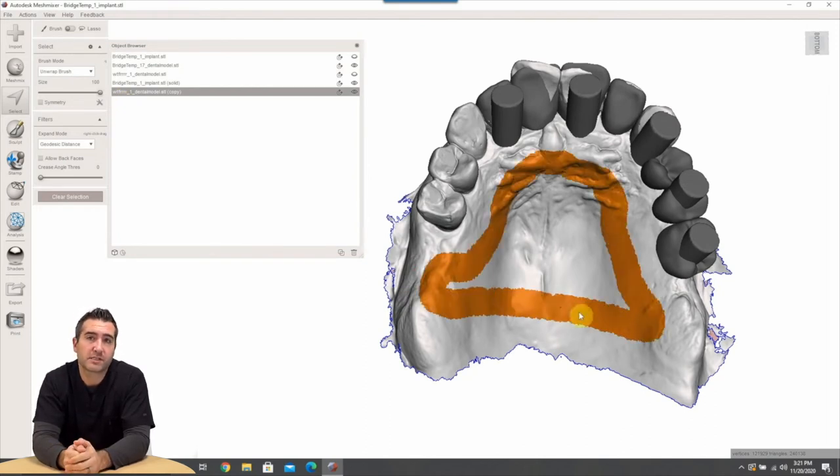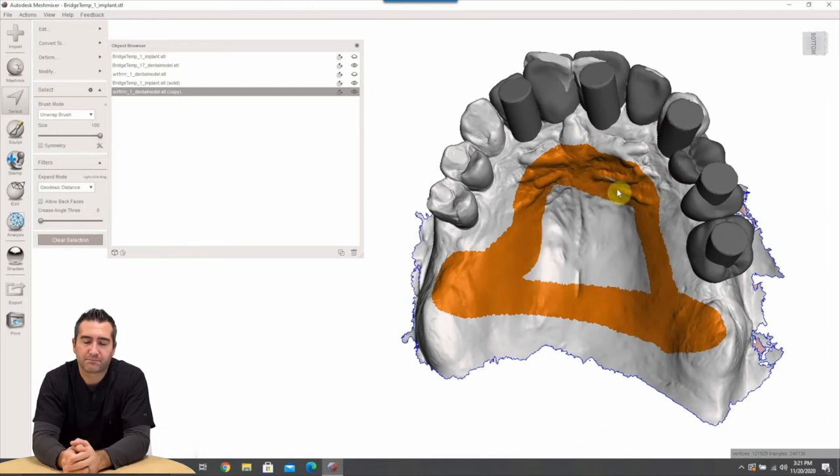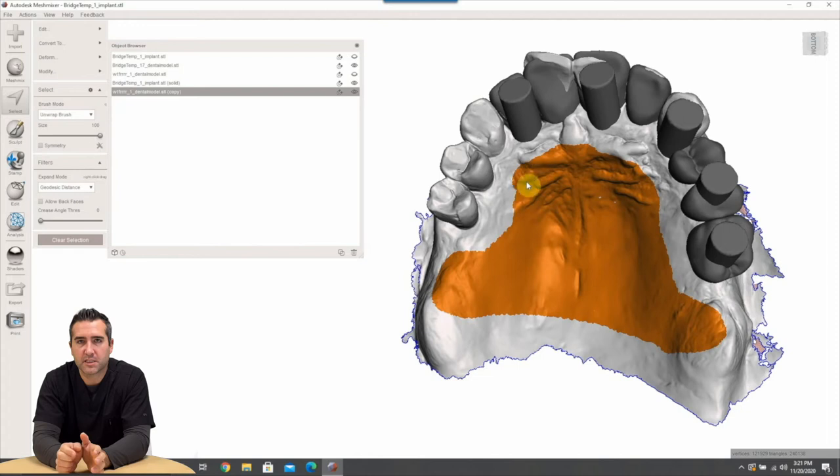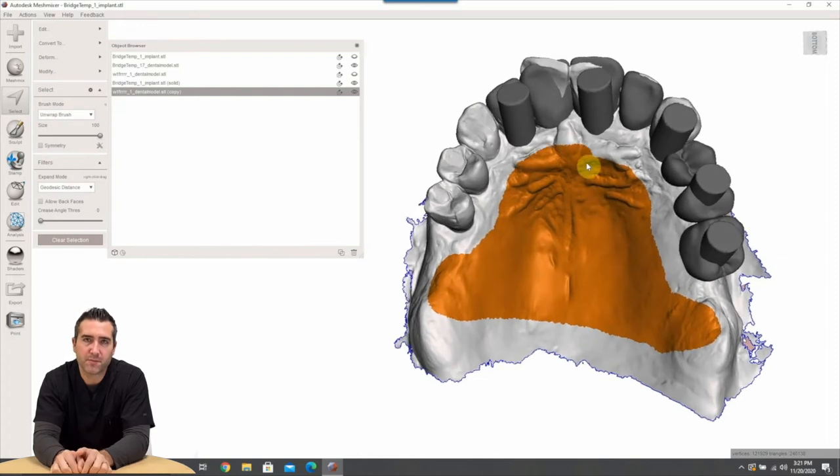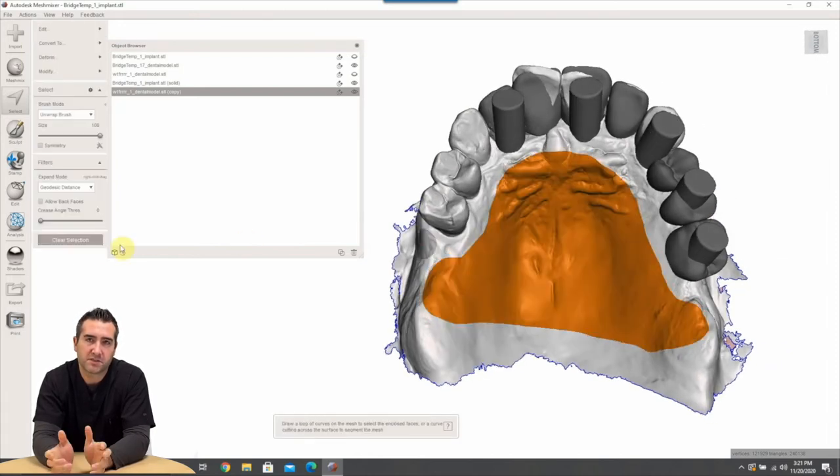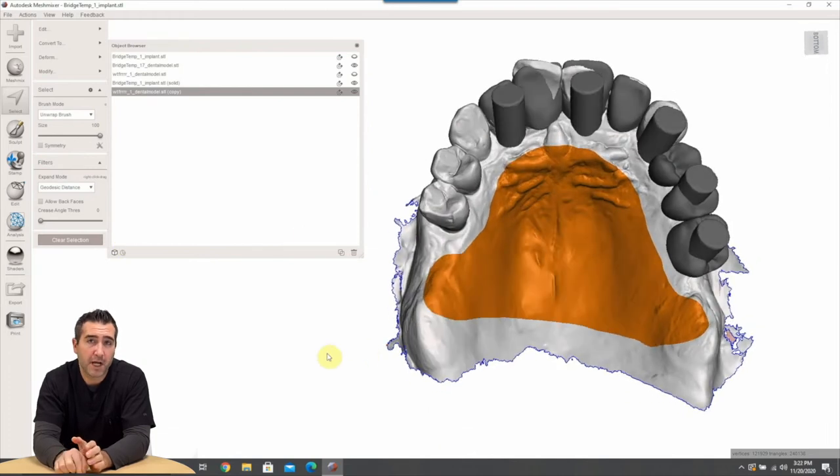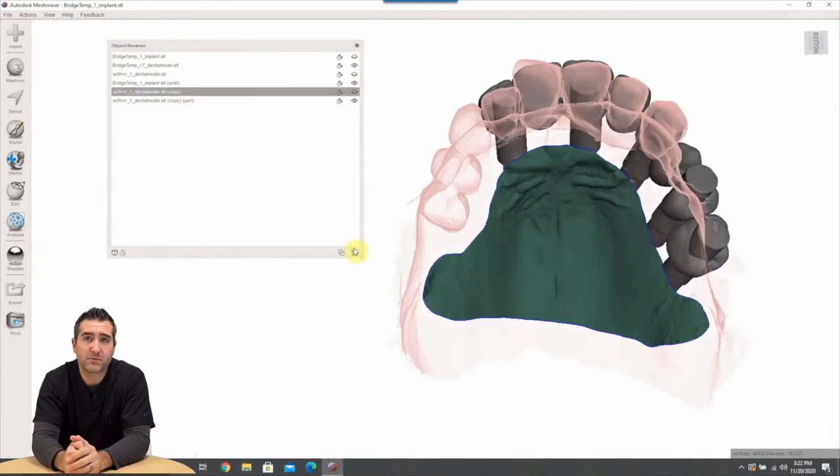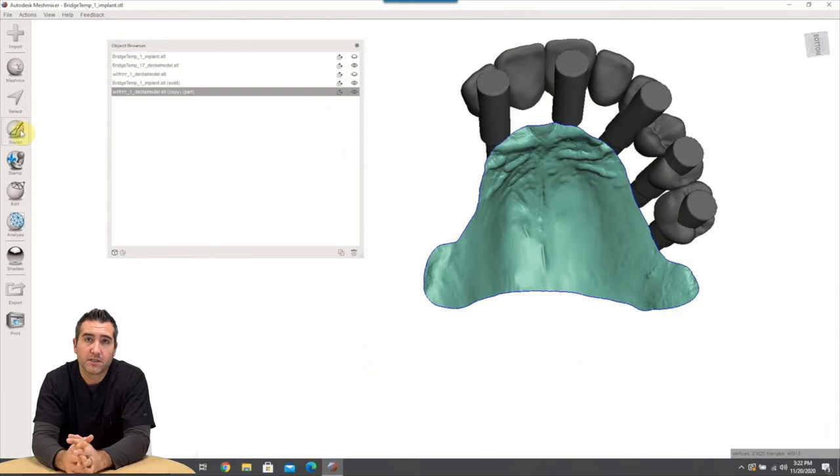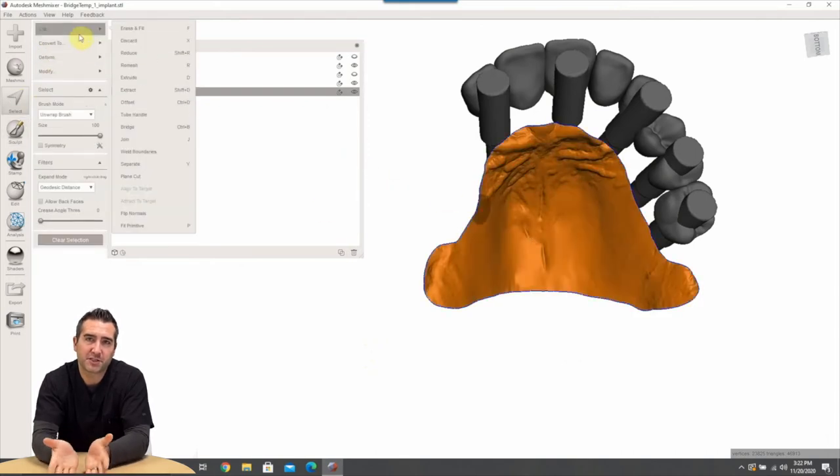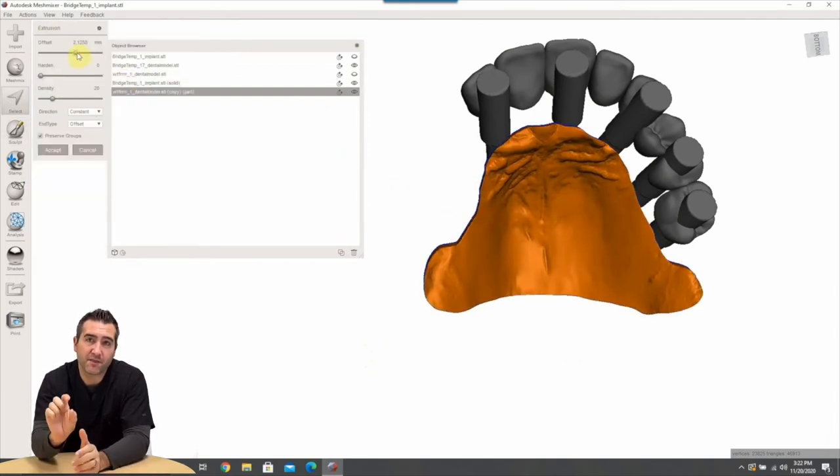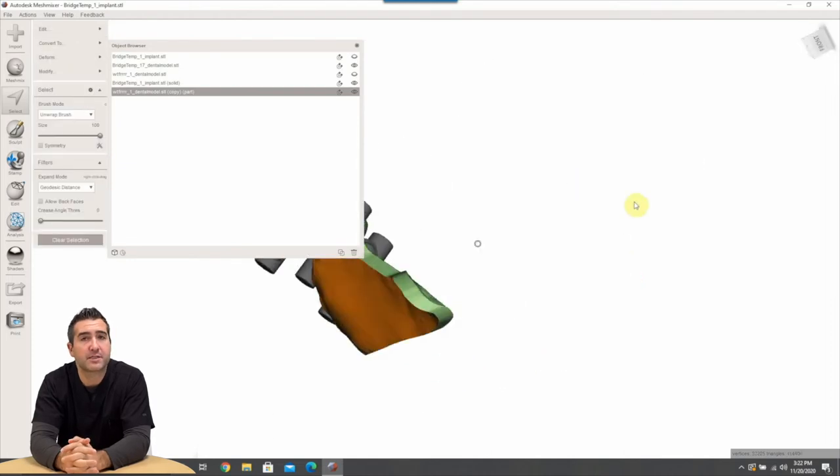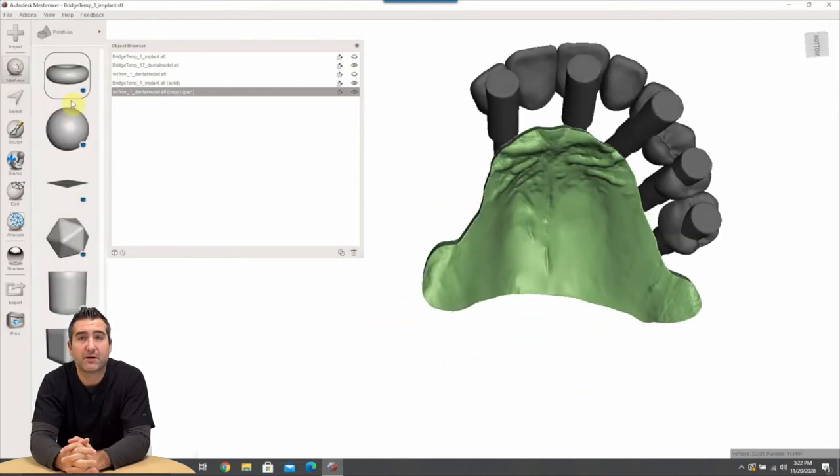The way that we do that, we just go to the select tool and we highlight the palate and then we're going to hit B on the keyboard, B as in boy, to smooth that border so that it's not so jagged. There's the B, nice perfect smooth. And we're going to hit Y, Y is going to separate that out of its own file and then we're going to go to extrude and we're going to extrude it two to three millimeters to make it thick. So that's basically how we just created in about three seconds a perfectly fitting palatal jig.